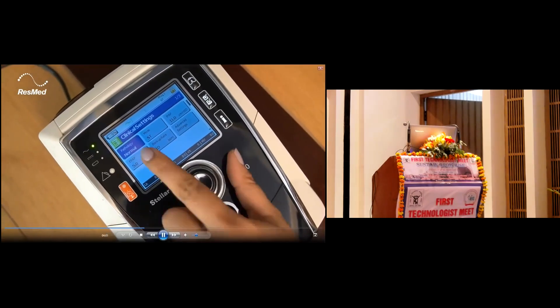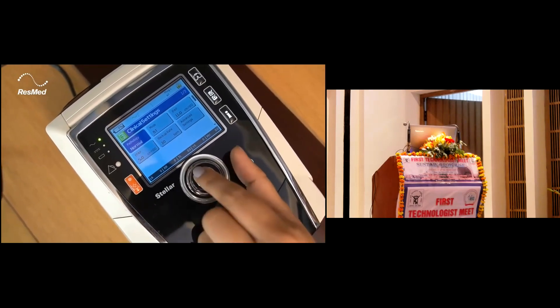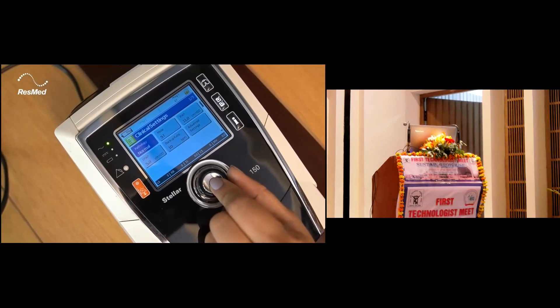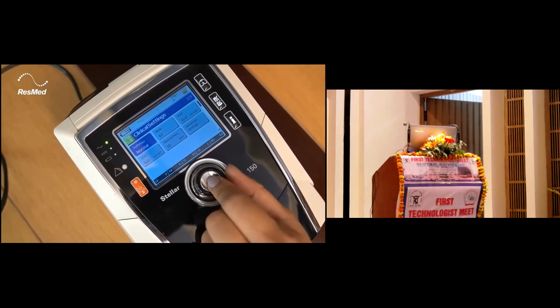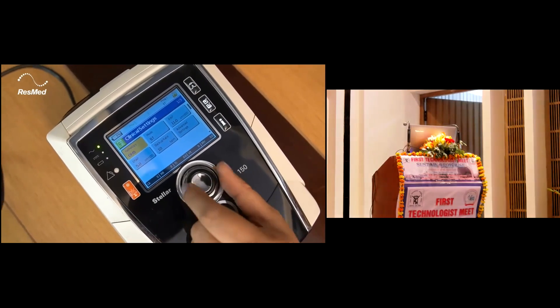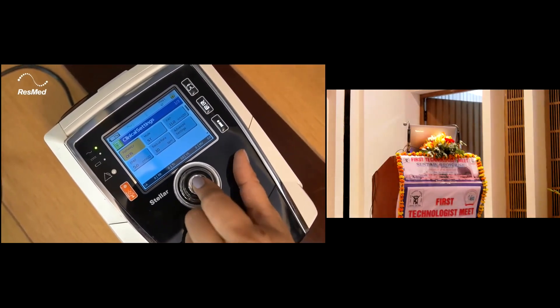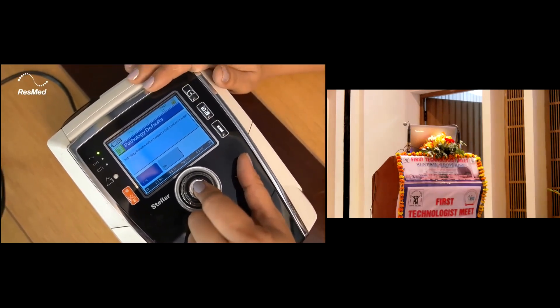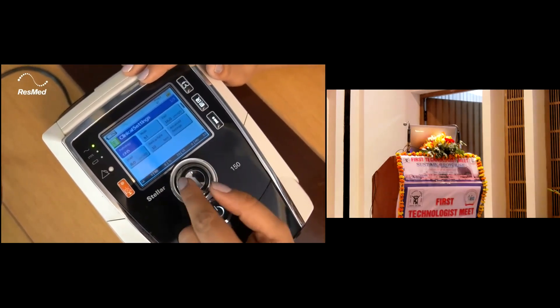A unique feature about the Stellar is it has the pathology setting. If there's a new person doing the settings or your assistant who is not very sure, he can just click on pathology and choose the pathology that the patient has, and the device itself will put the initial settings for the patient.